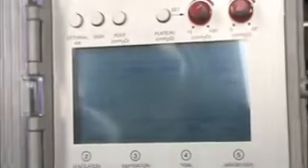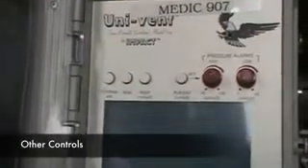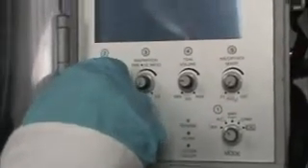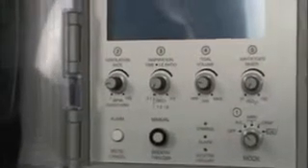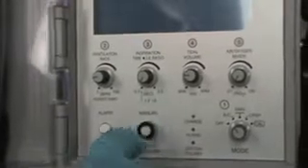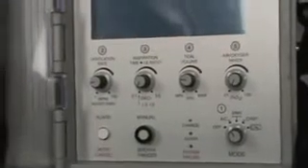So let's see. We talked about AC mode, SIMV, CPAP. We talked about rate, I time, tidal volume, and FiO2 settings. So there are some other controls that we'll talk about with the ventilator. One is delivering a manual breath. You'll see down here there's a manual breath button. So I'm going to drop the respiratory rate here to about 9. If I was listening to the patient's lung sounds and I didn't want to wait for the ventilator to cycle another breath, I could just hit this button and it's going to deliver another breath to the patient.